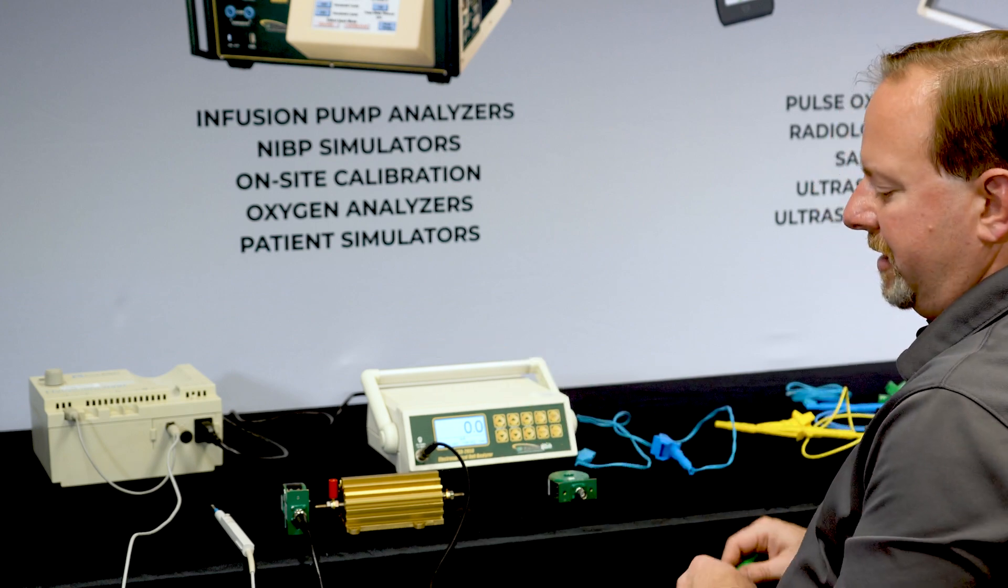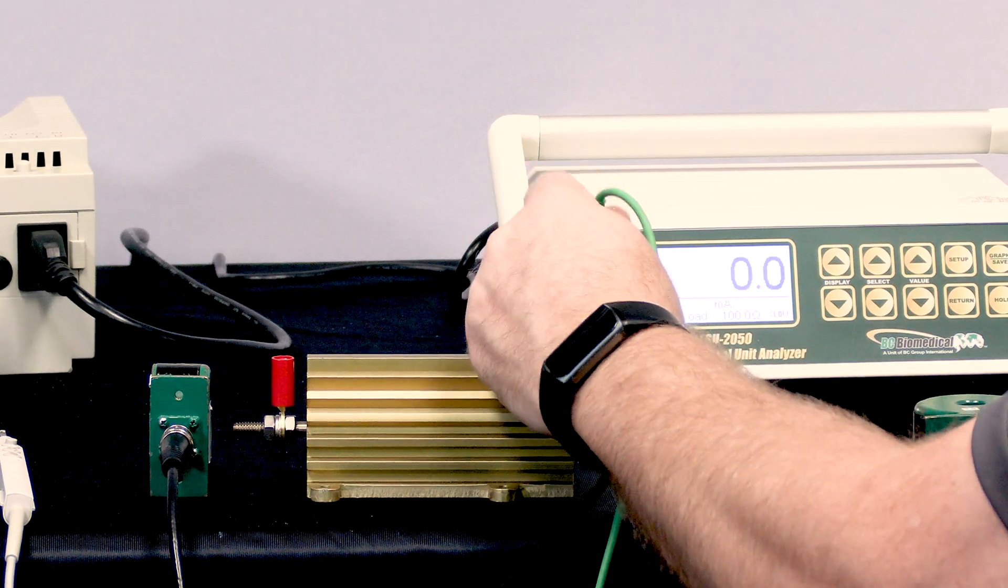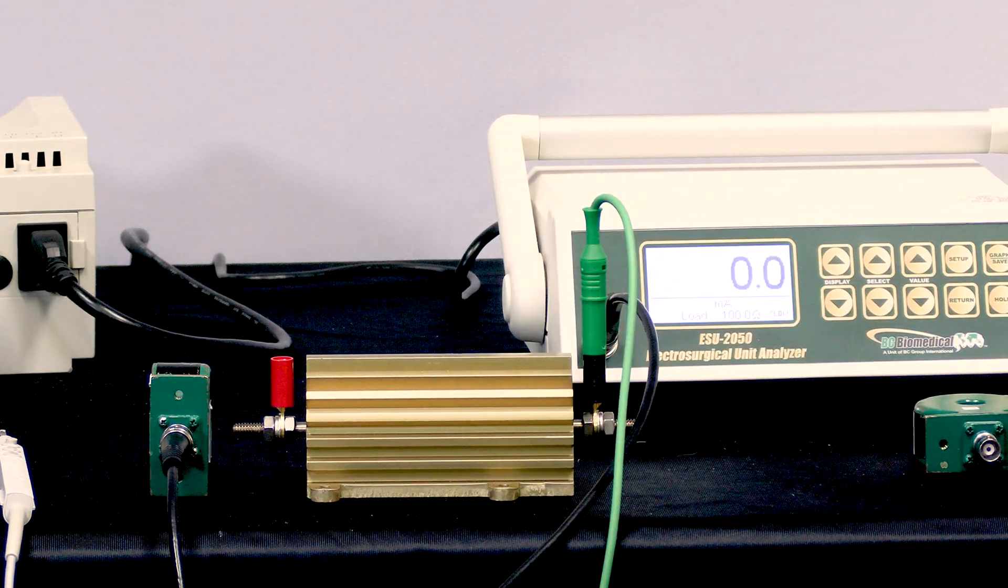So our connections consist of an earth ground connection on one end of our test load. That represents the table.